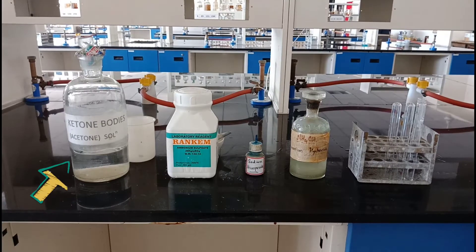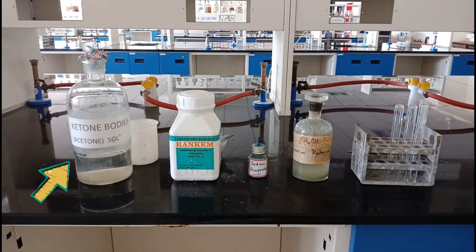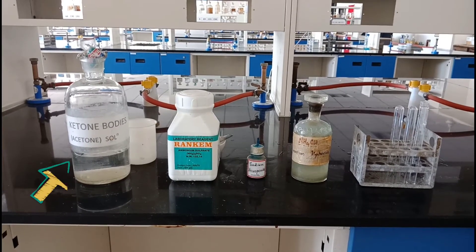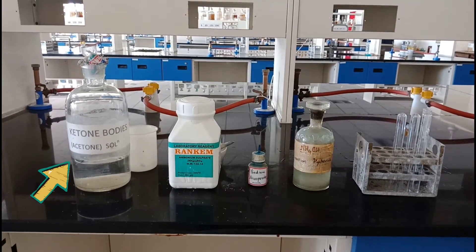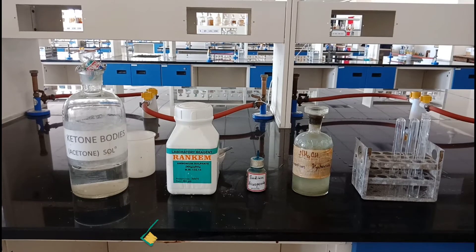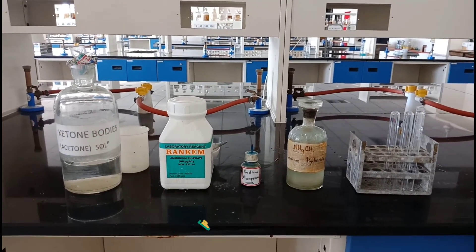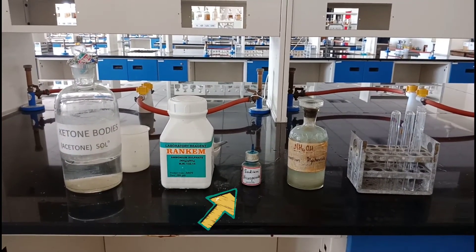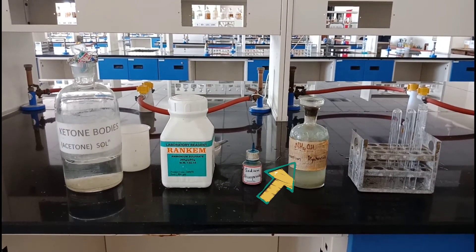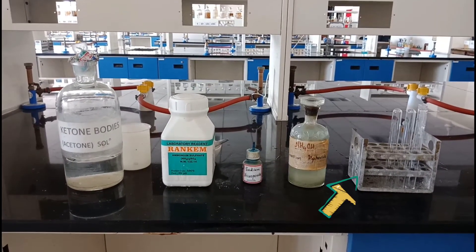For this, we require a urine sample. This is an artificially made ketone body solution, but you can consider it as a urine sample. Then, ammonium sulphate powder, sodium nitroproside, liquid ammonia, and a test tube.